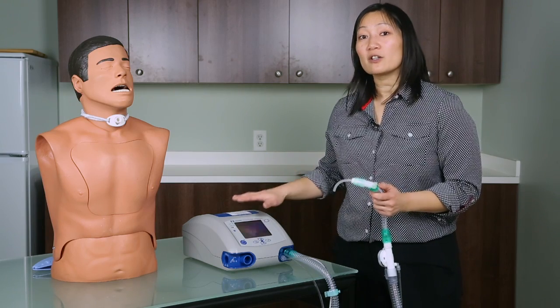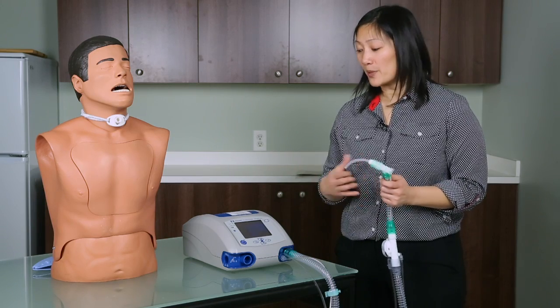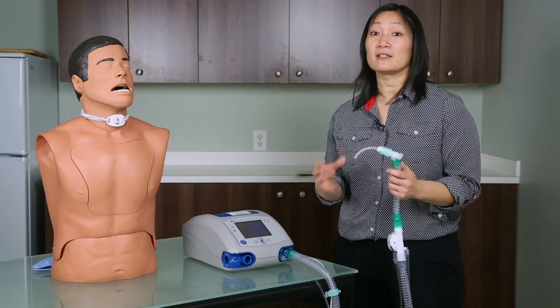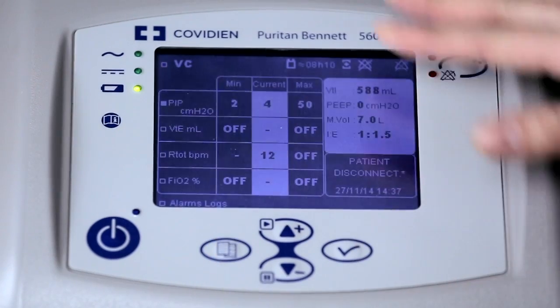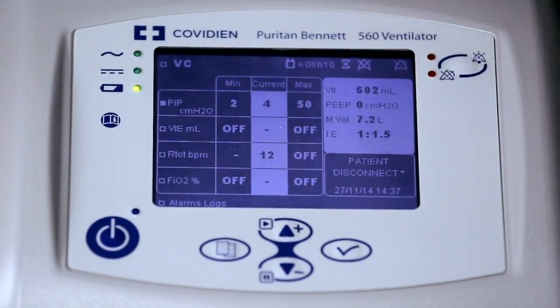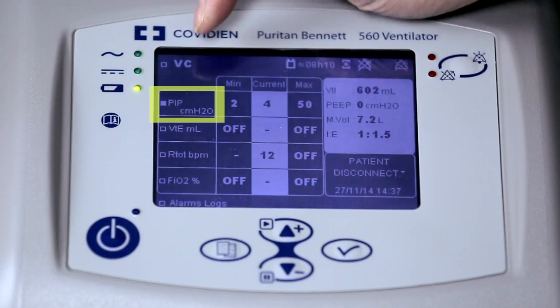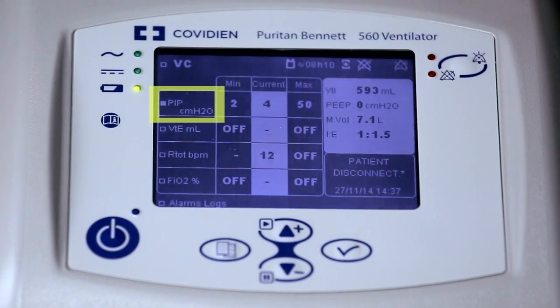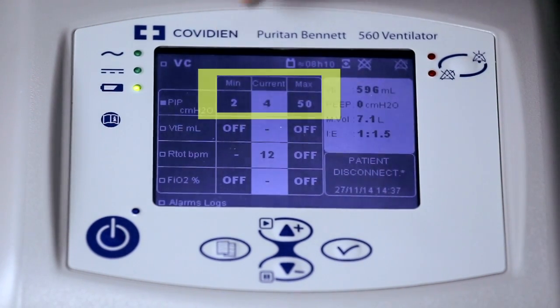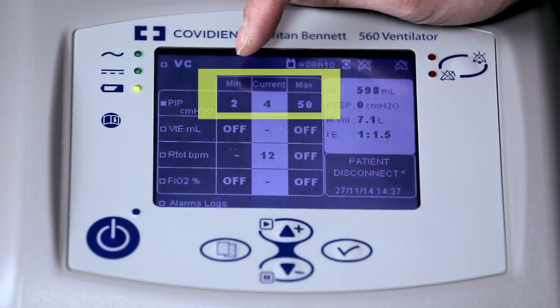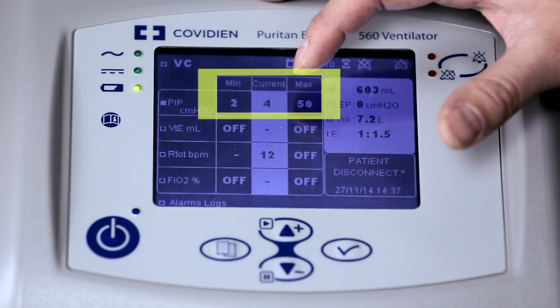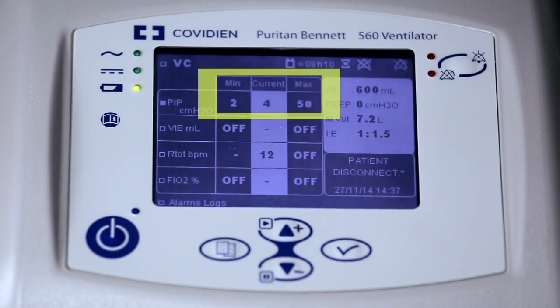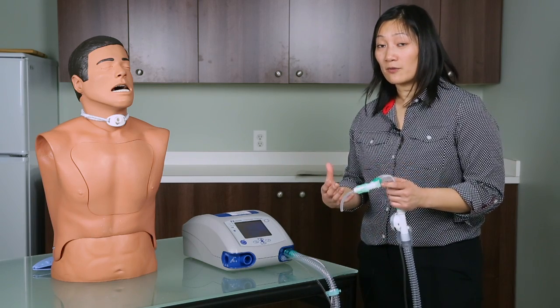Go into the alarms menu and adjust the low pressure so that a patient disconnect alarm will occur with this simulated disconnection. On the menu, scroll to the alarms menu on your ventilator and find PIP centimeters of water, which stands for peak inspiratory pressure. In the three columns you'll notice the minimal alarm, the maximal alarm, and the current measured pressure. Right now the low pressure alarm is set to two centimeters of water, but the actual back pressure created in the circuit is four centimeters of water — which is higher than the alarm setting, so the ventilator is not visibly and audibly alarming.